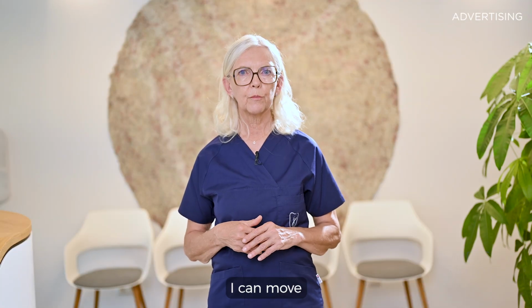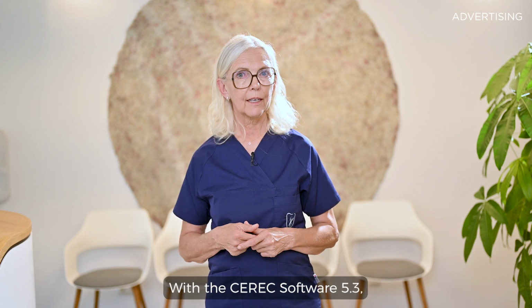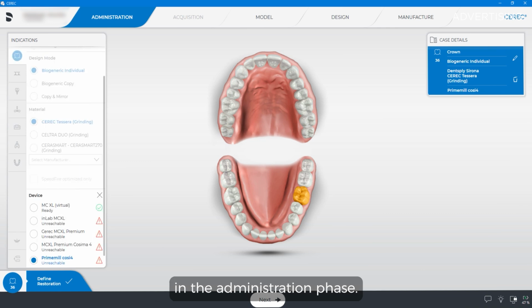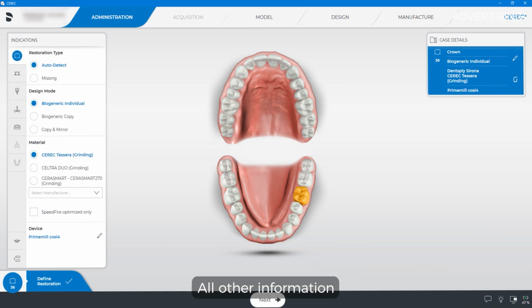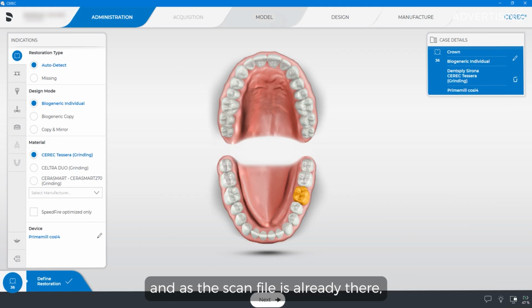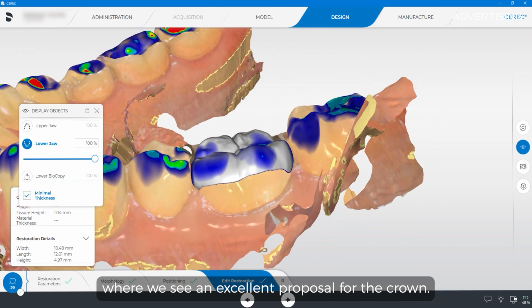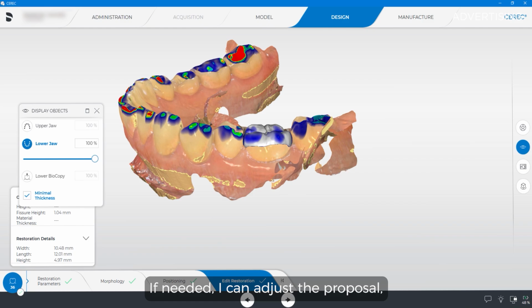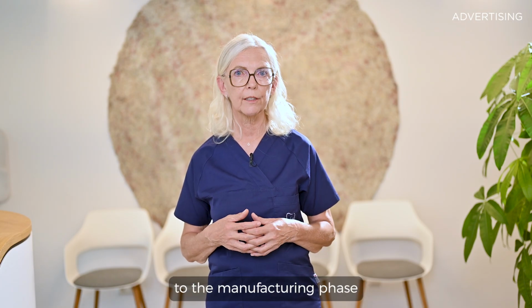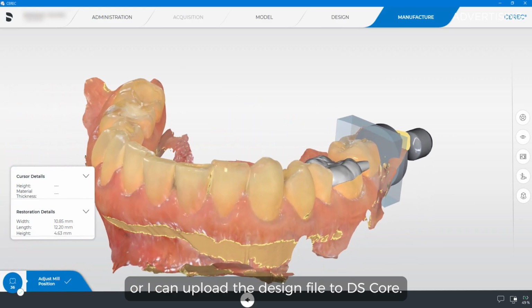From there, I can move forward to design the crown and continue on my workstation. With the CEREC software 5.3, I only insert the block information in the administration phase. All other information has already been transmitted from DS Core. And as the scan file is already there, we directly move to the design phase, where we see an excellent proposal for the crown. If needed, I can adjust the proposal, but in most cases I can directly progress to the manufacturing phase. Or I can upload the design file to DS Core.